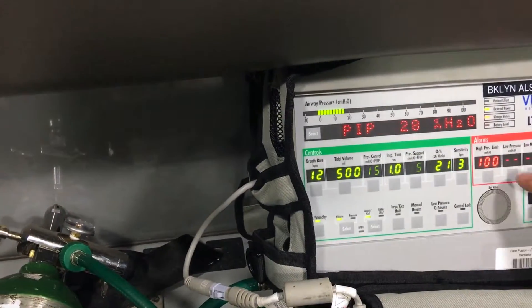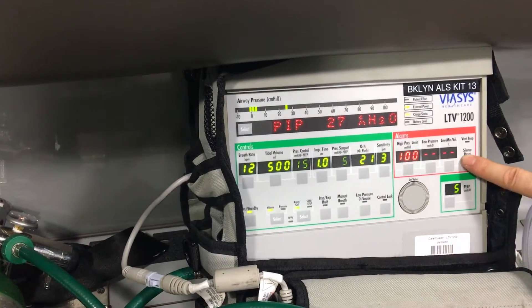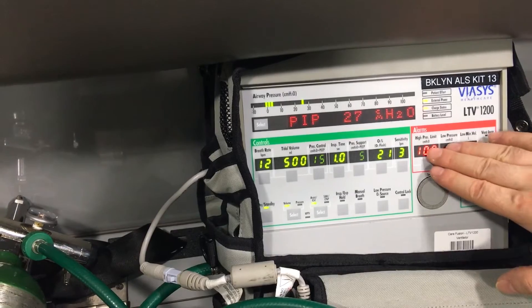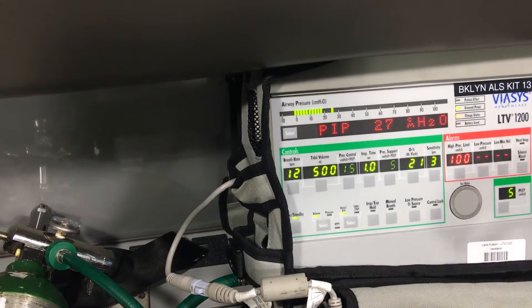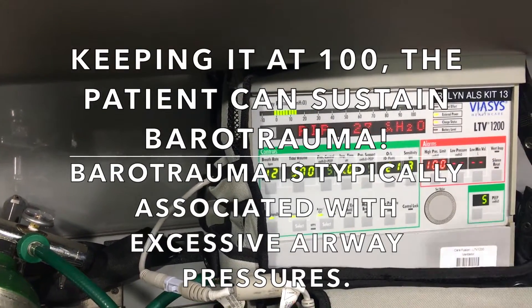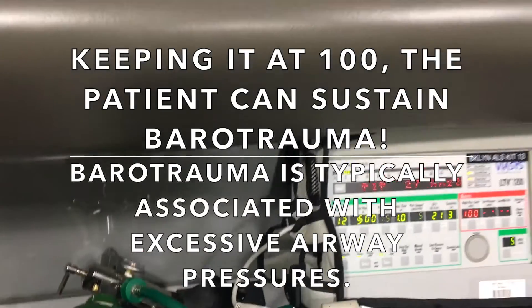Now if you're doing transport and your alarms look like this — which most of the time this is what I've found with medics, because it's beeping and they're tired of all the beeps — they just put it to one hundred and they put it to dashes. Problem solved, right? Wrong.